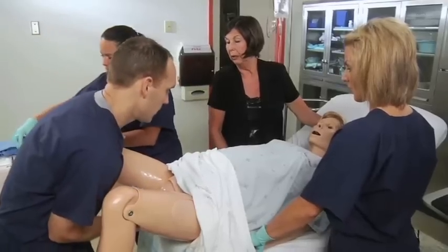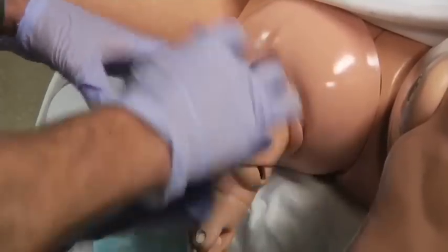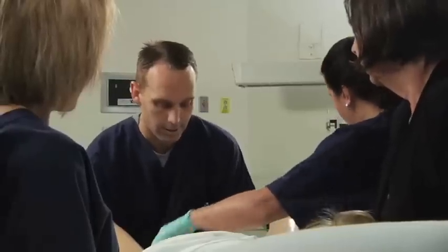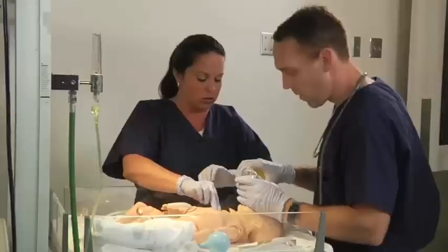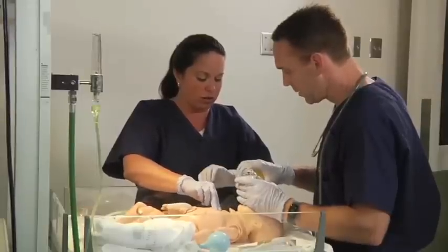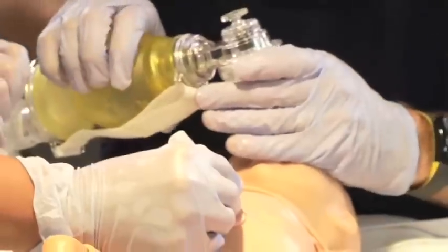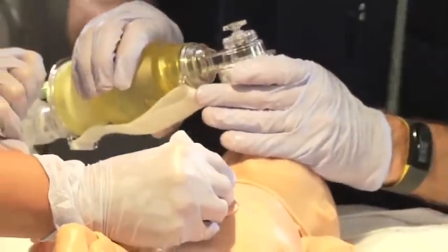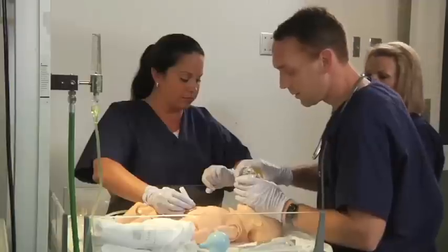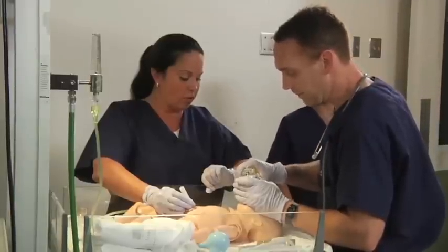The MOSE system comes with a new Noelle Birthing Simulator, as well as a neonatal resuscitation simulator. These have been upgraded and modified based on feedback from users and OB simulation experts, because the goal is to deliver that high fidelity simulation experience while still making it easy to use and mobile so that it can be put anywhere it needs to go.